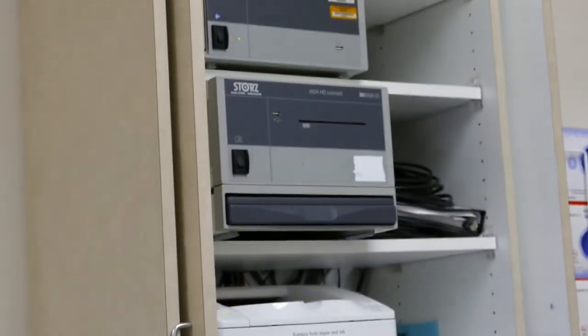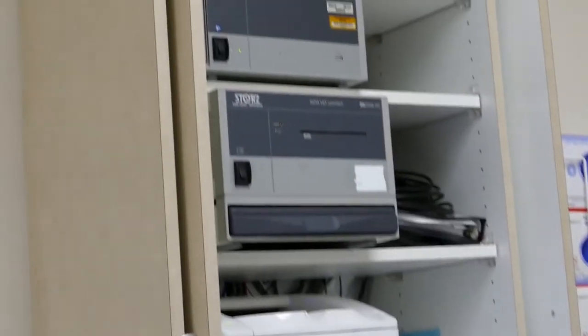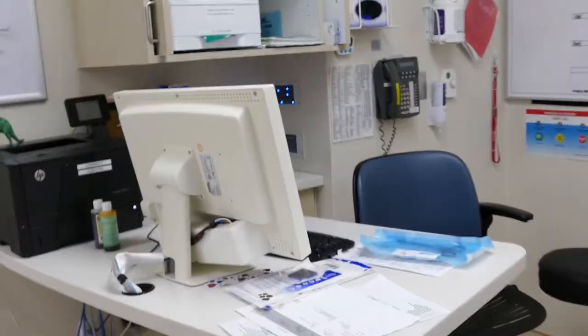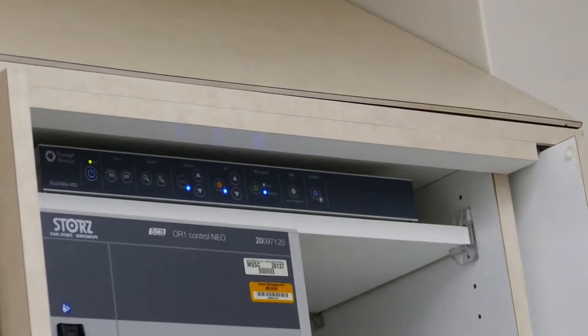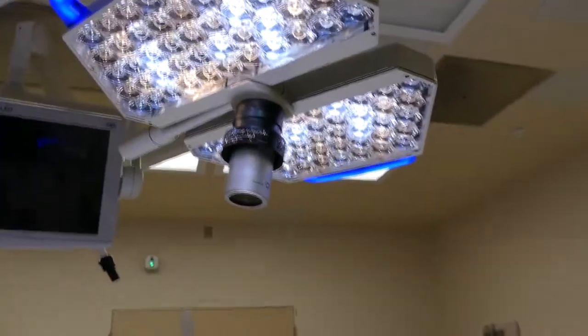One of the things I didn't talk about is the overhead cabinet. You can see I have a video recorder right there that will record either still images or live motion video, and we put it in the patient's chart. There's this little box right here which allows the circulating nurse — the one sitting here — to control these devices. And at the very top is the controller for the in-light camera. You can see that little thin bar at the top right there. Often they'll put the in-light camera on this big monitor so all the staff in the room can see where the doctor's at, so he doesn't have to tell them the progress of the operation.